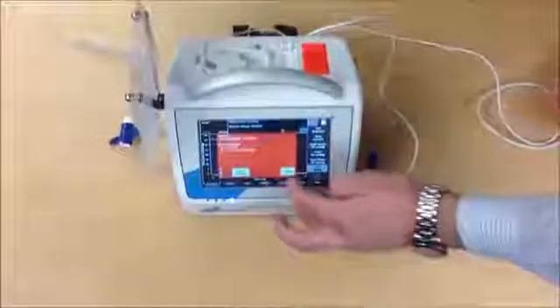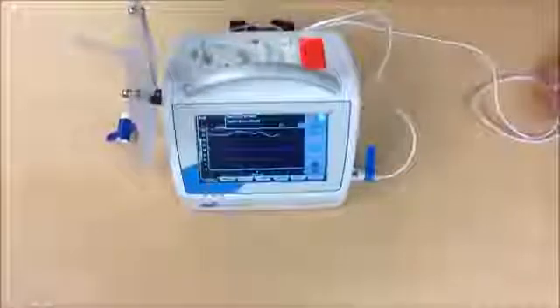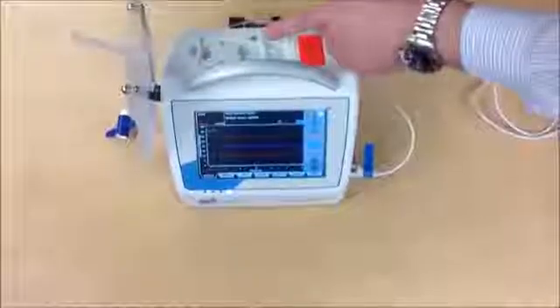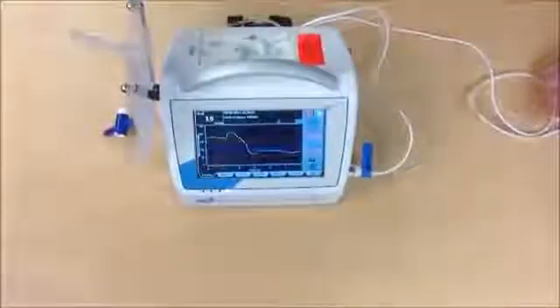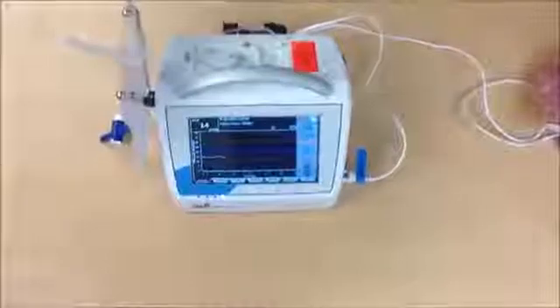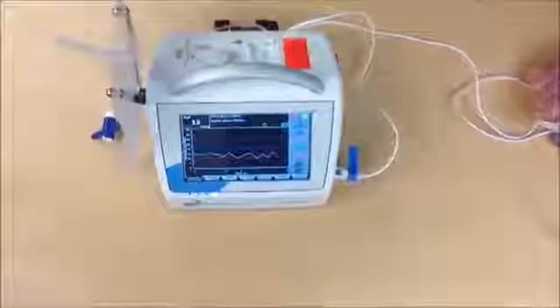The pressure remains high and the pump will now start speeding up, and the pressure goes down. By doing this, we save the patient's life. We drain excessive high pressure.